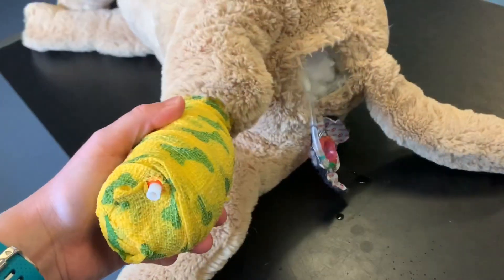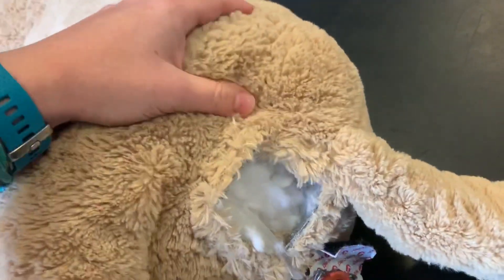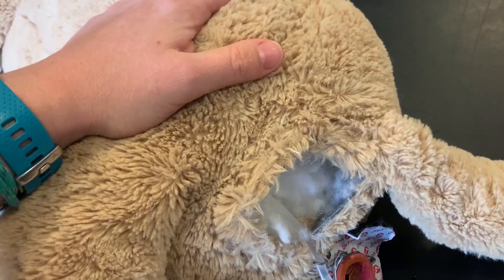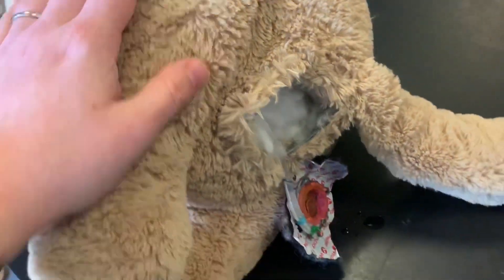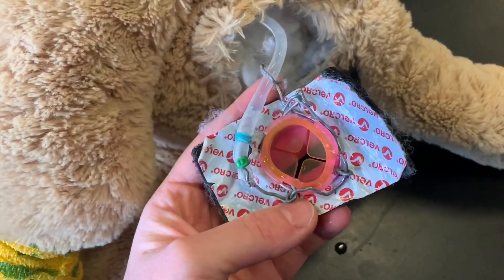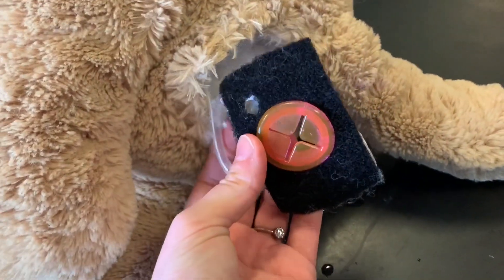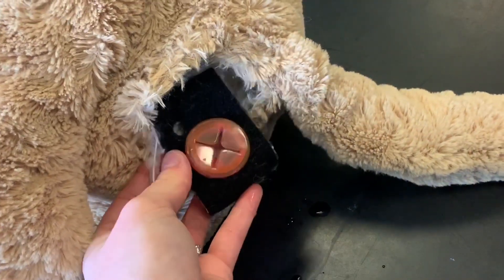Hopefully this video has been helpful in explaining how I got to where I got with my model. He does also feature a genuine canine pelvis which has a prostate fitted, which we can change — I can do another video talking about that. Areas for improvement would be really this armature in the back here, and potentially if someone has better sewing skills than I do, fitting that into the model.